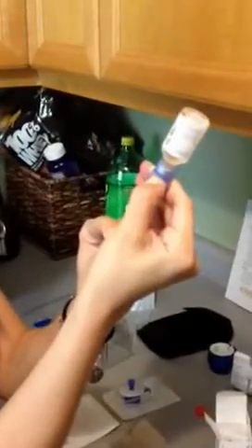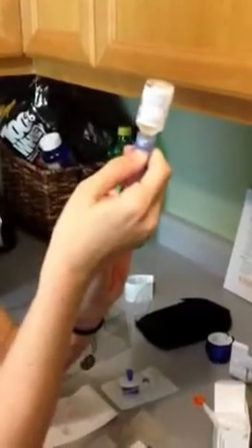I'm opening a new vial of insulin. First thing I'm going to do is get my little container that the insulin is going to go in. I'm just going to put that right over the vial and fill it up. We have to do this every three days, and the glucose monitor you just have to do every six days. I'm going to get the insulin in there and get some of those air bubbles out. Make sure there's no bubbles, and then this little guy is good to go.